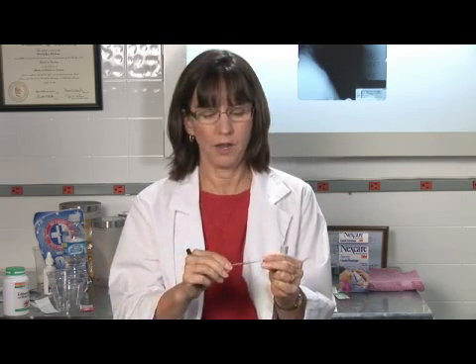You're interested to know how to use a mercury thermometer. A mercury thermometer has been the mainstay of taking temperatures for years and years. My name is Beverly Bitterman, ARNP, Health and Wellness Consultant, and I'm going to tell you how to use this mercury thermometer.